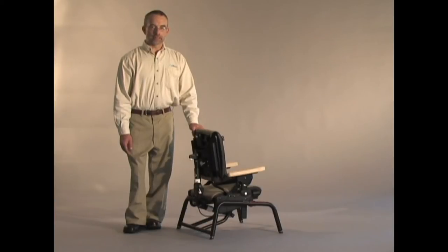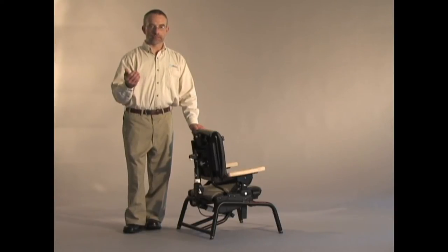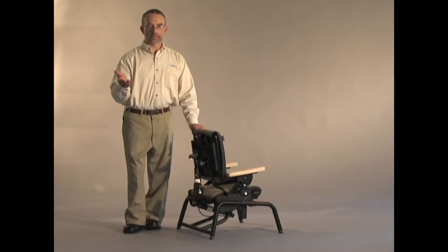Some children need the ability to move when they're sitting. They extend against the backrest, or some are repetitive rockers, and some, maybe with ASD, need to do some self-stimming of rocking gently against the backrest.